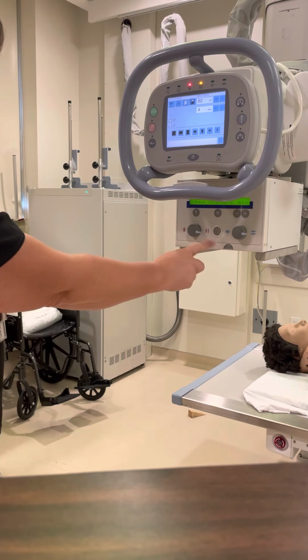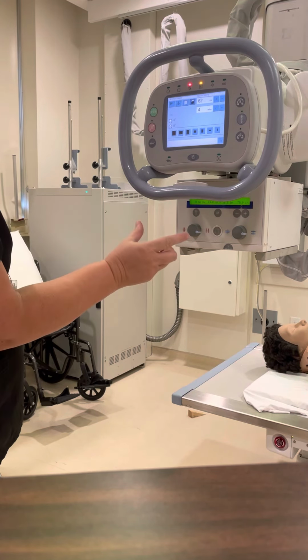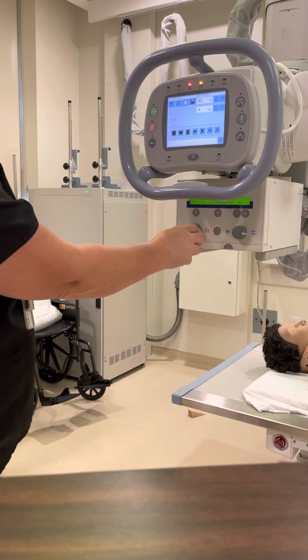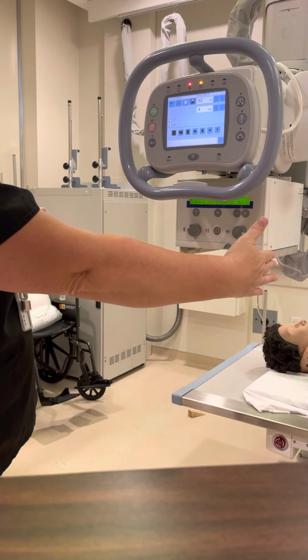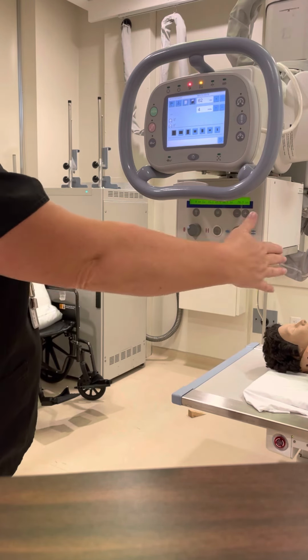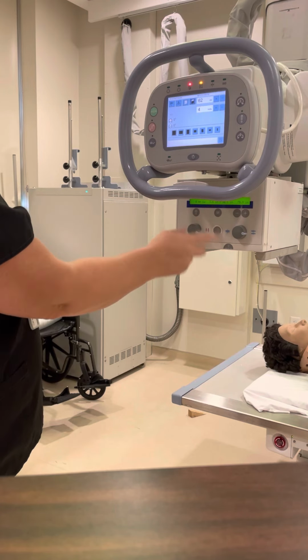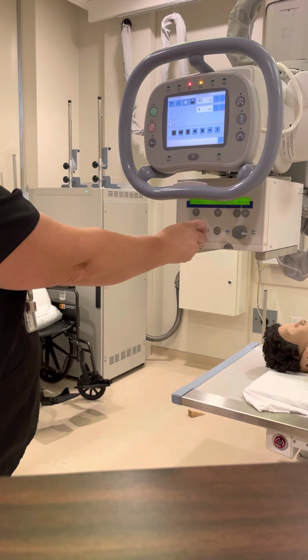this left side, if you look here, there's two little red pictures on the front. One of them shows the red bars close together, and one shows the red bars far apart, and that's the left to right. Okay, so if we're changing our collimation, if we twist this knob, then it's going to open the collimation inside or close it down, moving the collimators left to right, okay? So if we want it to be a smaller film, then we're going to bring that in. So we're going to turn the knob to the left or to this side where they're closer together. If we want to open it up wider, then we turn it to the right.